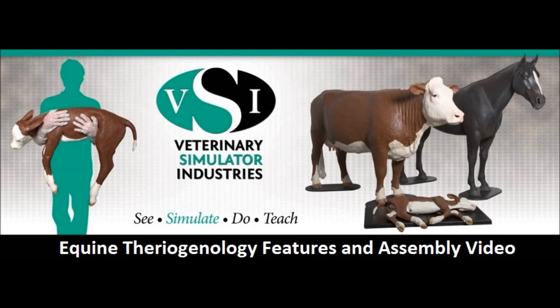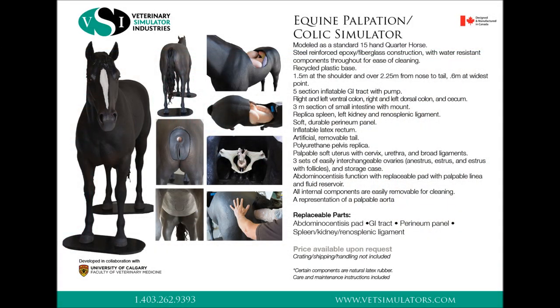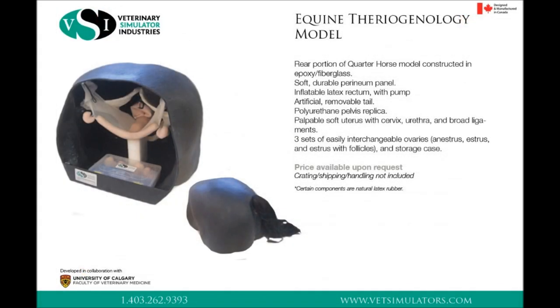This video will cover the VSI equine theriogenology features and assembly, which comes standard with the VSI equine palpation colic simulator, our full-sized horse model. The model shown will be our dedicated equine theriogenology model.